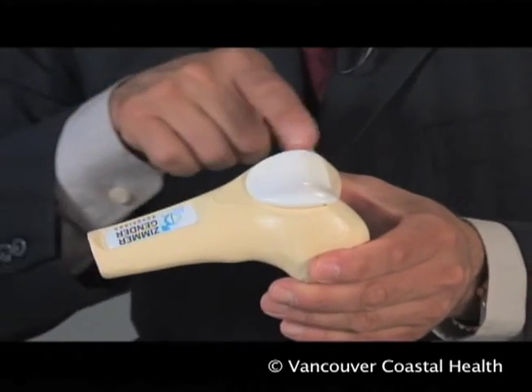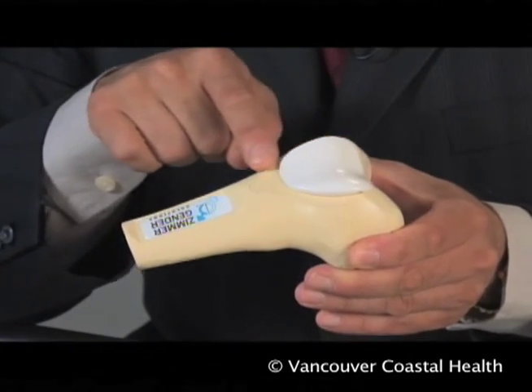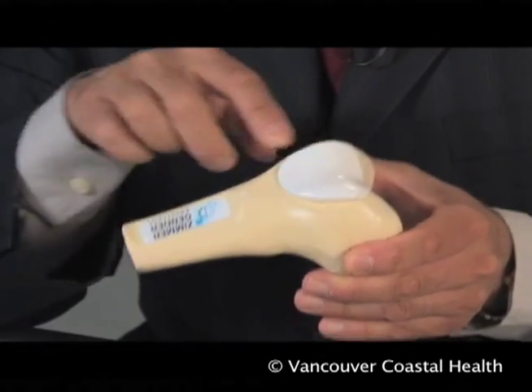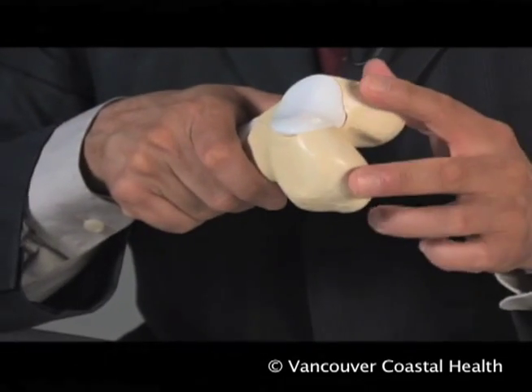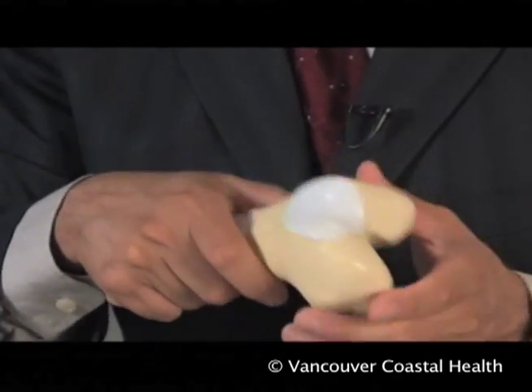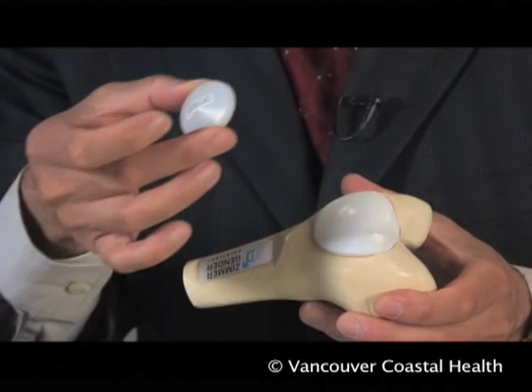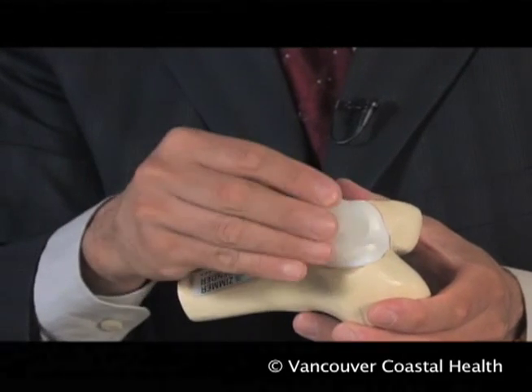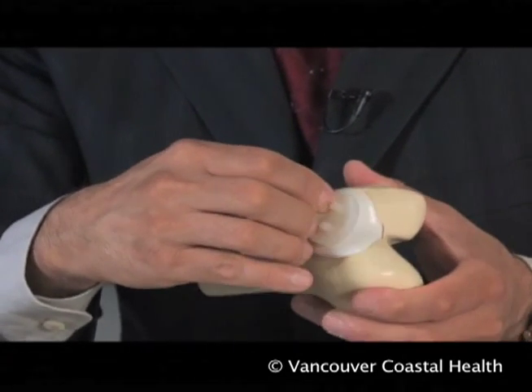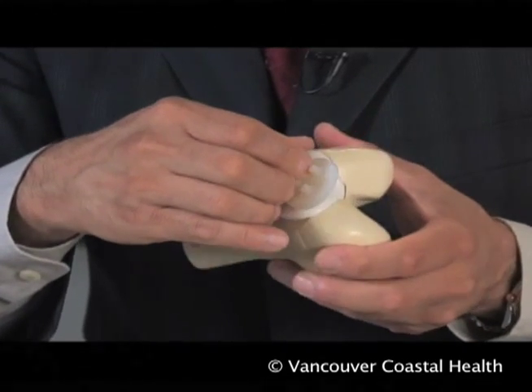With a patellofemoral replacement where the top of the femur is affected, the surgeon would remove a little bit of bone off the top of the femur while retaining the rest of the joint because it's normal, and then putting a patellar button such as this underneath the kneecap to articulate with that component to complete the operation.